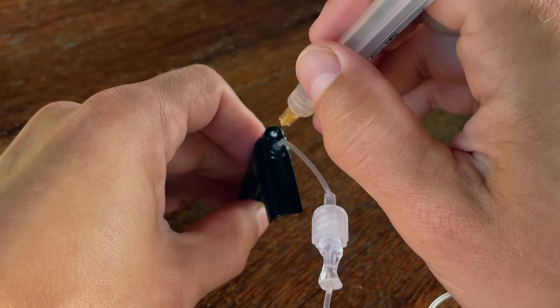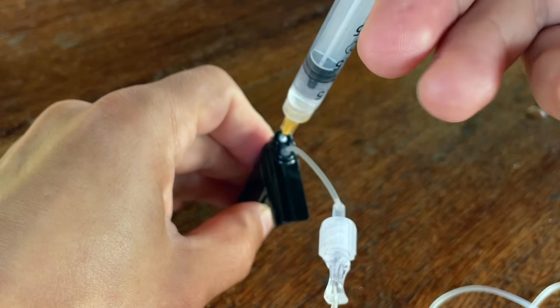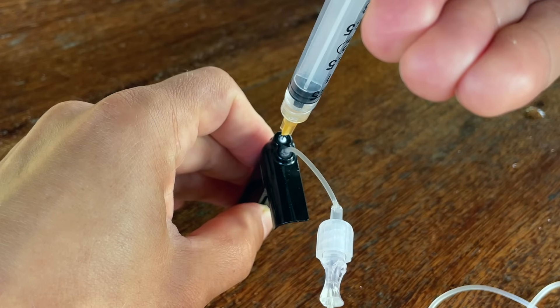But the disadvantage of this system is that filling the cartridge is very tedious. You need to inject the insulin into the bladder through a little hole, and if you don't hit exactly the middle of it the insulin will just not go in. It's all so tiny that if your eyesight is not 100% you might actually struggle. This pump also creates quite a bit of insulin wastage.